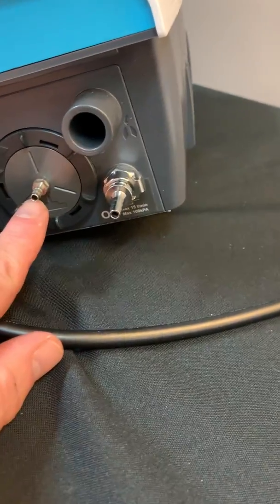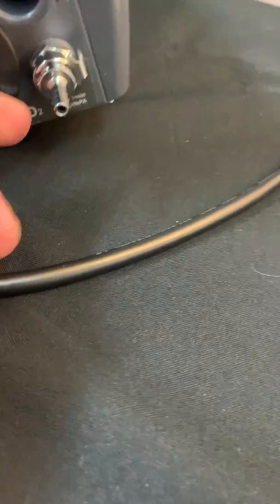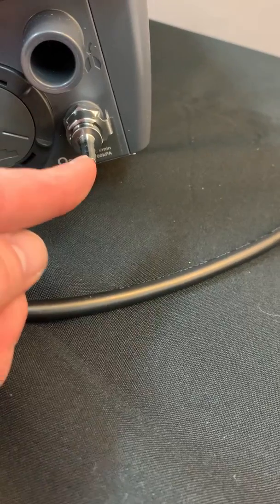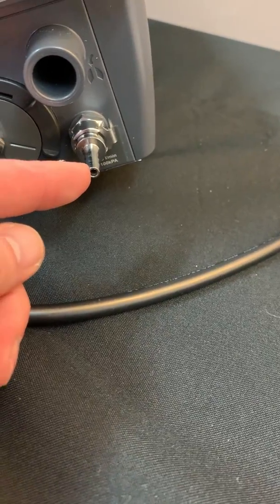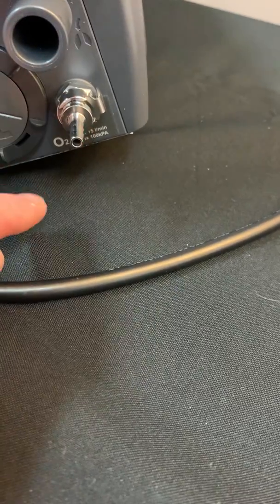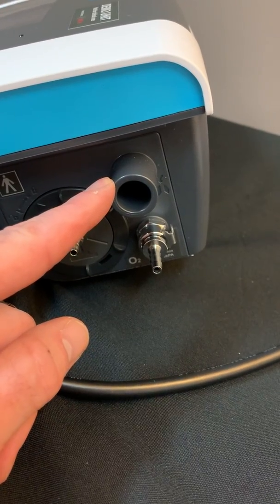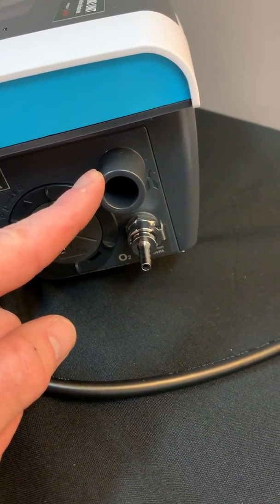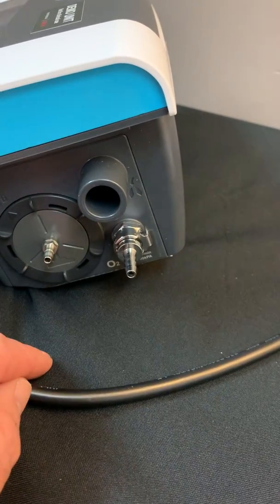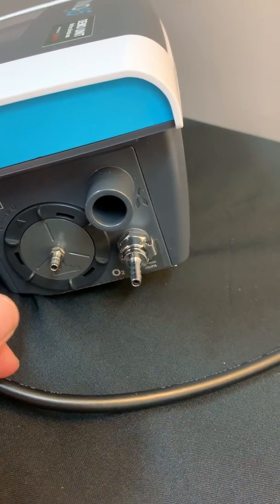This connection here is your O2 inlet. This is where you're going to bleed in your low flow oxygen. We are FDA approved for up to 15 liters of oxygen to be bled into this nipple right here. This is also where you're going to connect your single limb circuit — the inspiratory limb — though you can also use the Vivo 65 to incorporate dual limb.